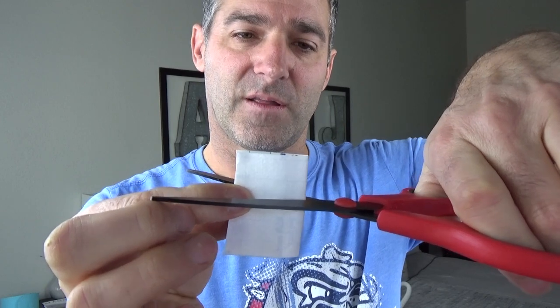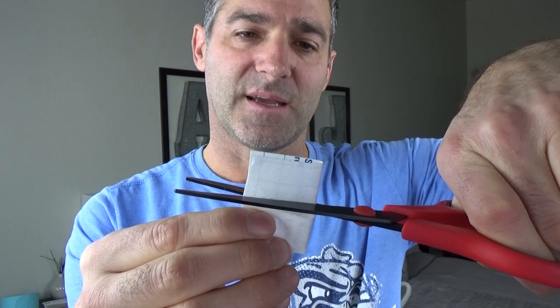So here is how you remedy that — this is still extremely effective. What we're going to do: take the tape, fold it in half, cut a little slit that's going to meet right where my lips meet. It doesn't have to be all that big — in fact, you want it to be semi-small — so that in a panic or a pinch, you can breathe out of that. If you fold this, you can see there's a hole there. The next thing, which is super important, is we're going to dog ear it. Fold over a little tiny piece, just enough that I can grab onto it. So now I'm going to do the same test with 20 centimeters of water after applying this. I peeled off the backing, I purse my lips together, try to line up the hole with my lips. It's plenty that I can breathe out of and I can talk out of it. This tape is very grabby and it does a good job of keeping my mouth closed.